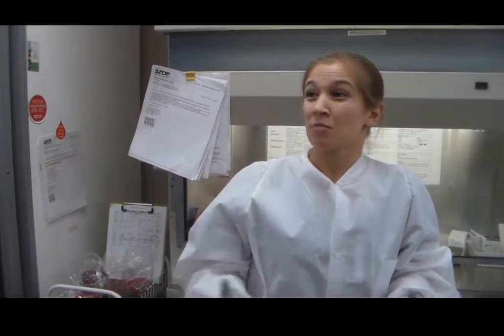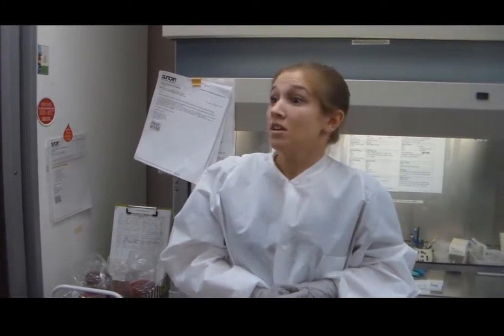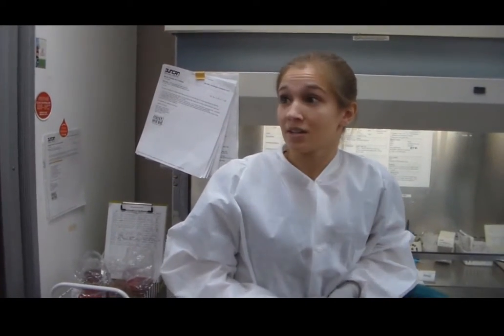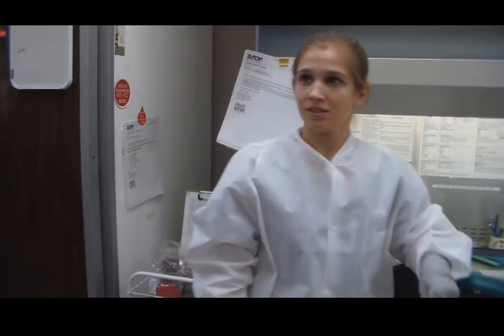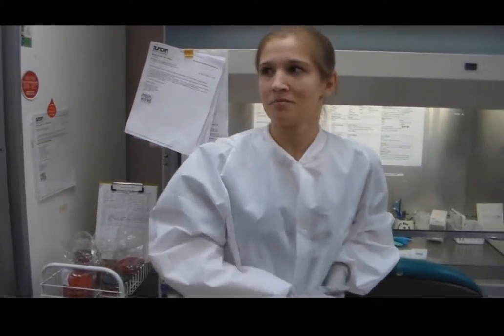That would be if someone was septic. That would be how we would let the doctors know, an infection of the blood culture. So you would be able to let the doctors know what bacteria was in the blood causing them to be septic. There's always someone here, in here. There's never nobody in. There's always at least 2 people. At 3 in the morning, you come in here, there will be somebody working.